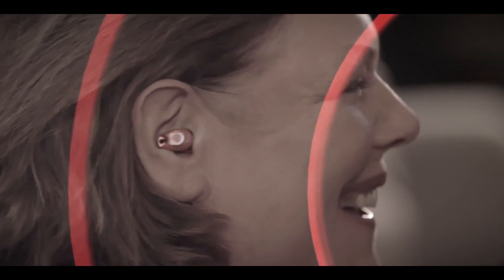Simply put, technology in the Bean automatically adjusts to changing sounds in your environment so smoothly you aren't even aware of it. The Bean provides such clear, natural communication, many people forget they're wearing them.